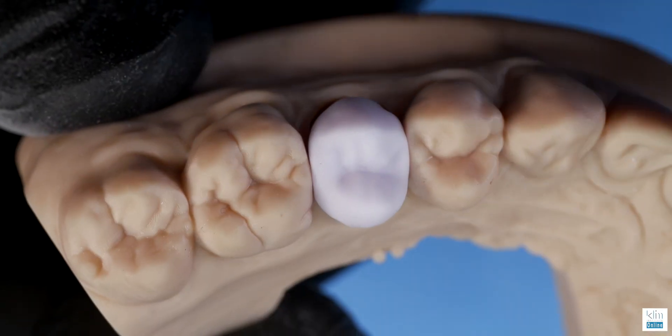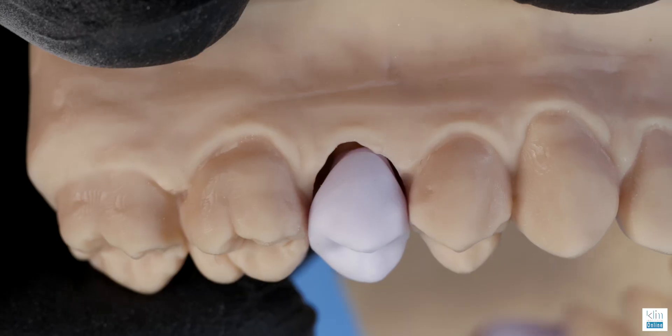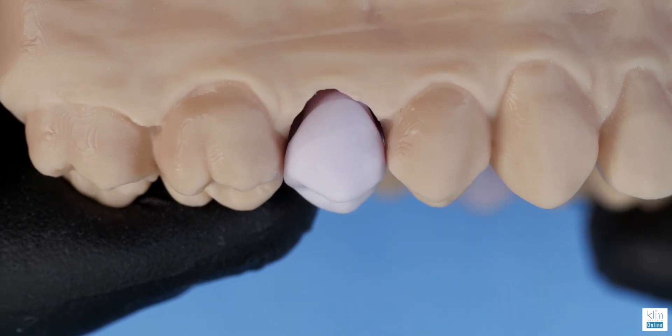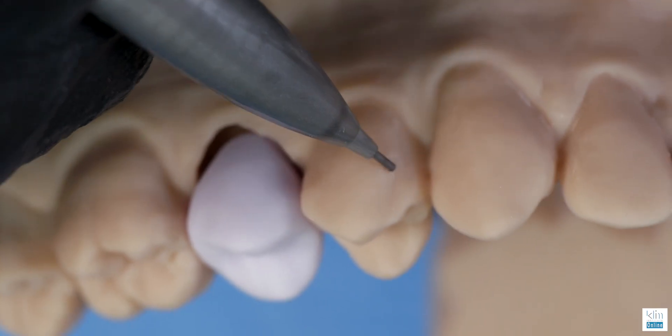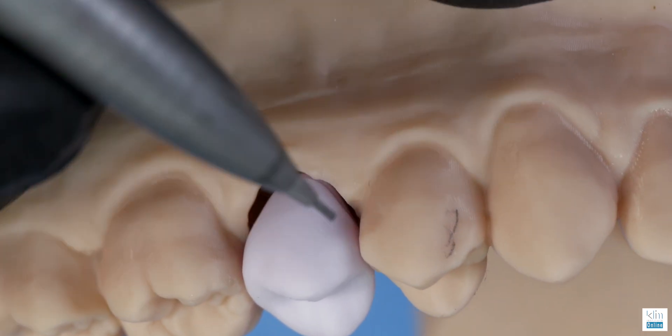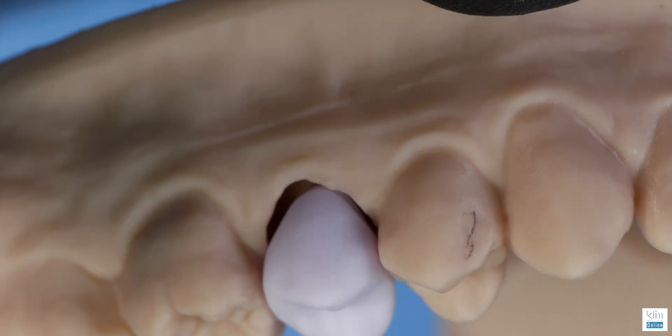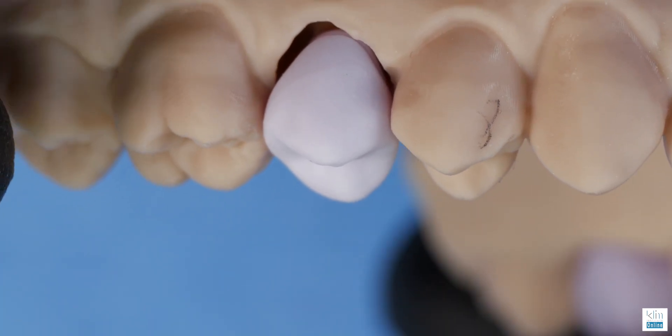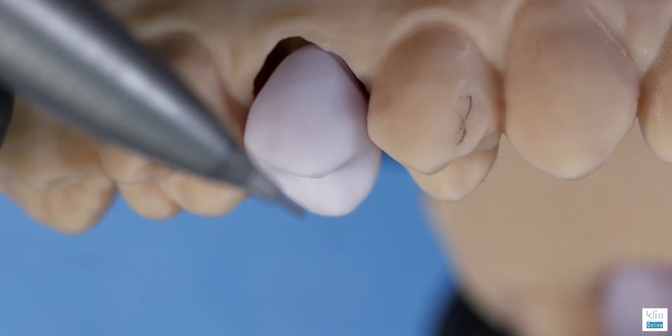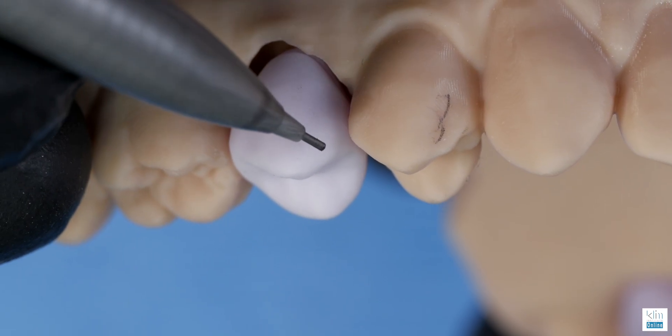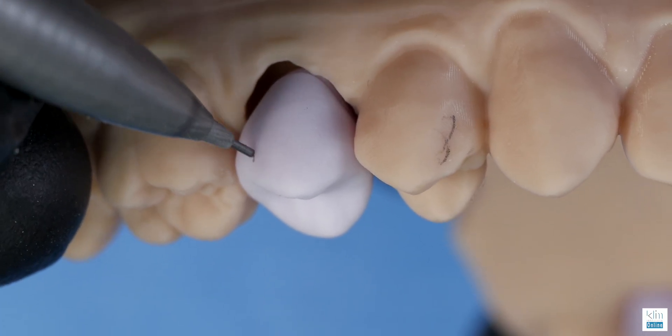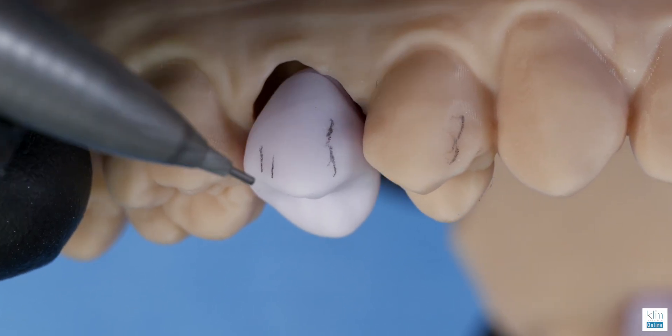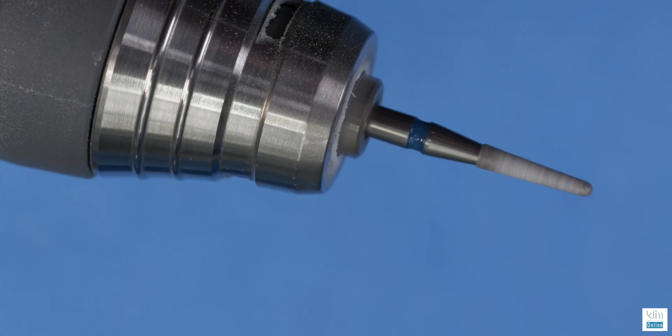This is the case I use for training at cleminstitute.com for implant restoration design and finishing. You can see it just drops right in with the right parameters and design. We're going to do some fine tuning. We map the adjacent teeth to pick up some of the nuances that we want to duplicate with the refinement of this restoration.